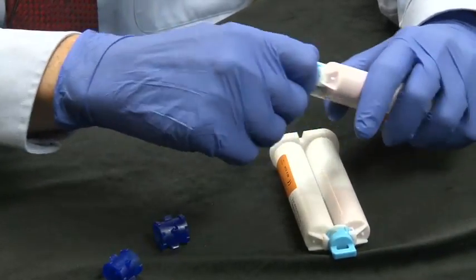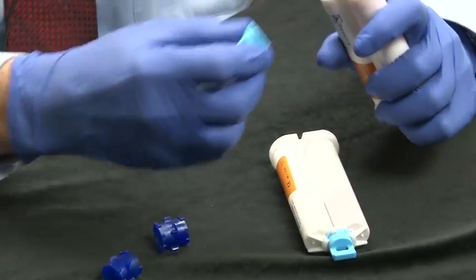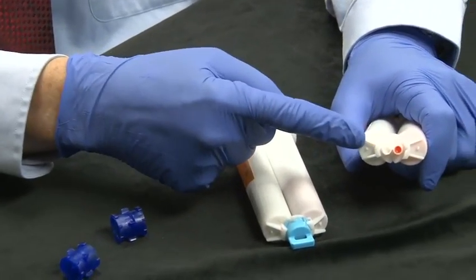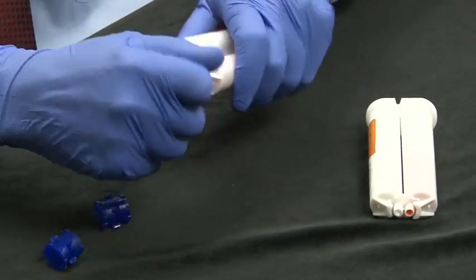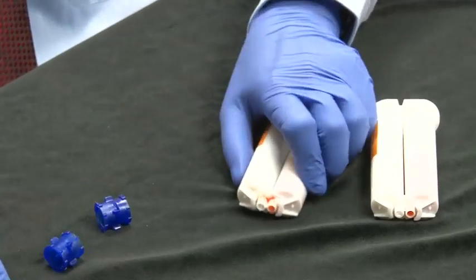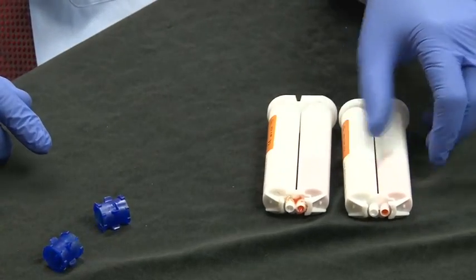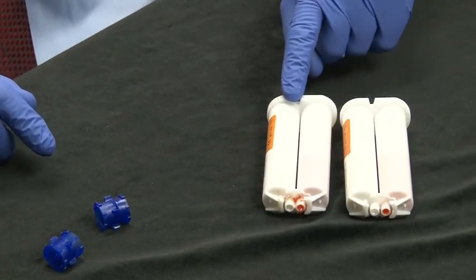So if we take this and we take this off and look at the orange at the tip on this side here and the white over here, if I take the other one, the other tip off and do the same thing, you'll see that the colors are on the same side as it relates to these markers.